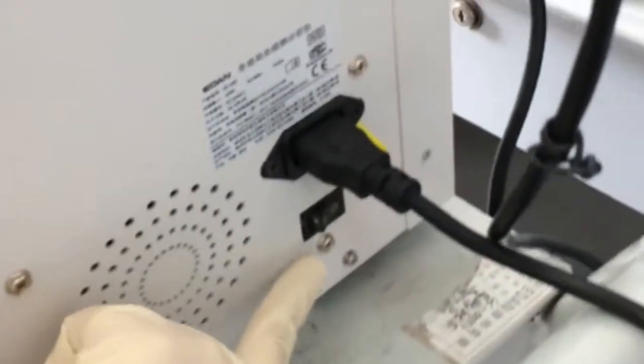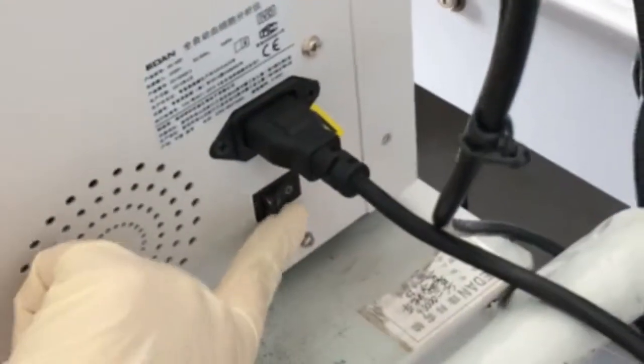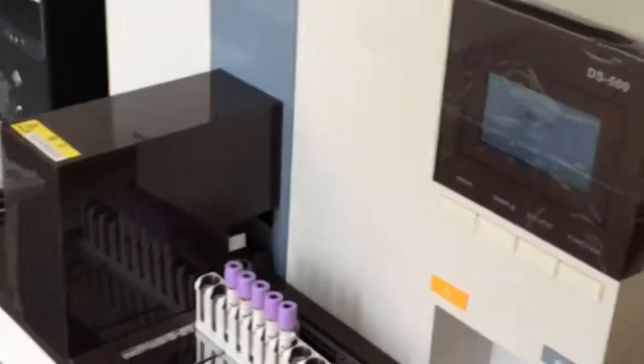So let's begin. The switch is behind the analyzer in here and switch it on. Wait for around 10 minutes for the analyzer to automatically check everything for itself.